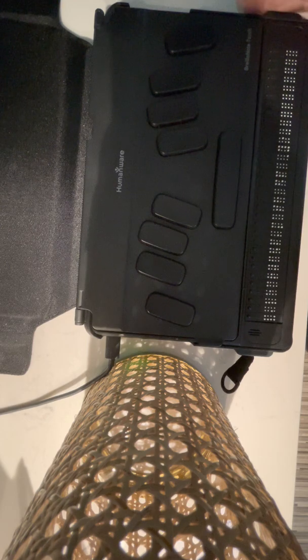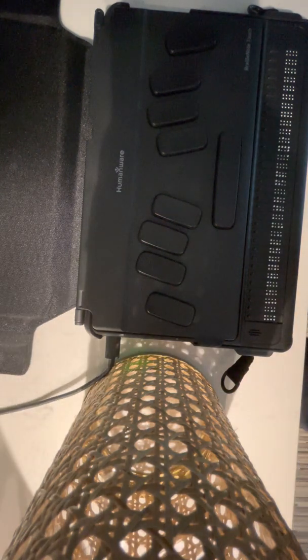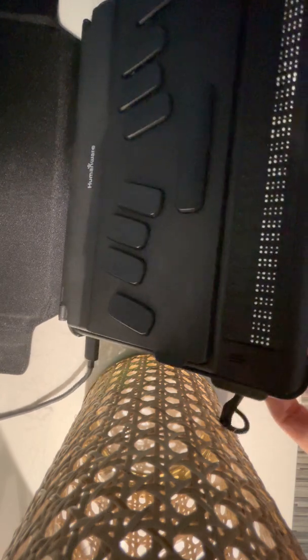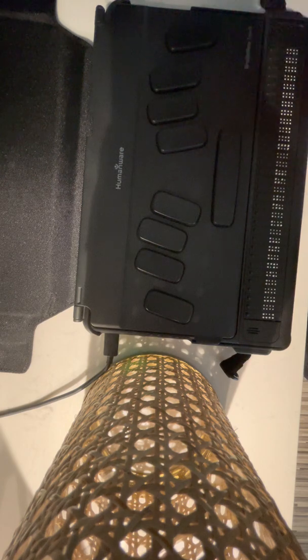I'm gonna go ahead and I need to get to my context menu in order to import the math portion. So I'm gonna go ahead and press that square button that's on the front portion of my device. I'm gonna go ahead and open this just so we can visually see what this looks like. Okay, so it has my name above it and then I've got math. So I'm gonna press context menu, that square.